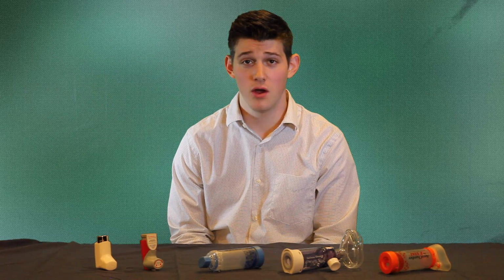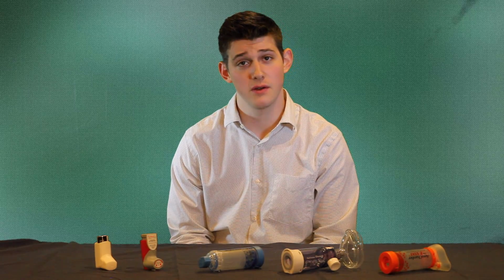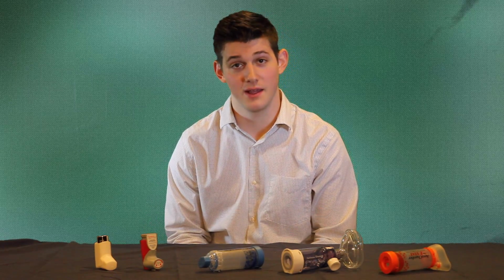So, in this video, we are going to show you step-by-step instructions on how to use an inhaler and spacer, and how to convey that understanding to kids. The quality of the first instruction has been shown to directly correlate with better patient outcomes, so we need to do a good job here.